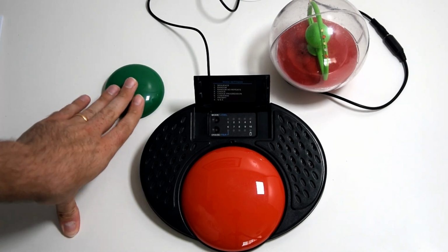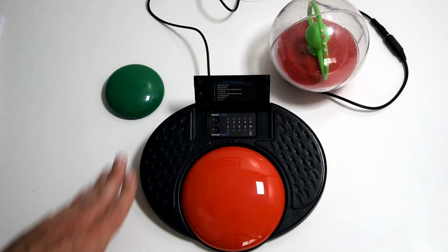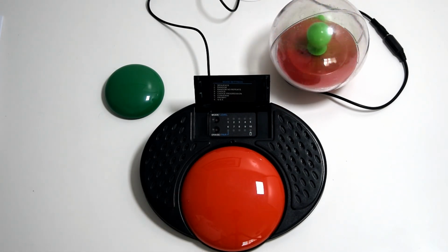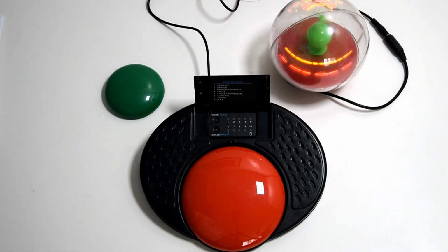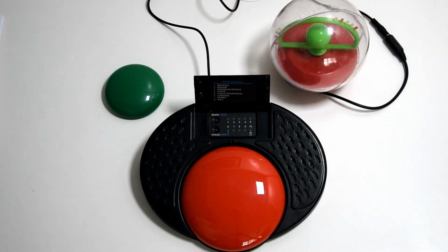Next question. What colour is grass? What colour is grass? And as I said before, you can repeat the question if they missed it. Green. But you'll notice Green. it'll only keep answering. Green. It won't move forward to the next question until we press the question button. So it's a simple back and forth question answer situation.